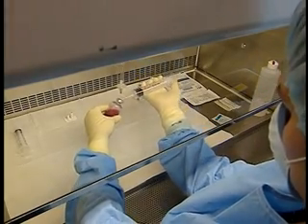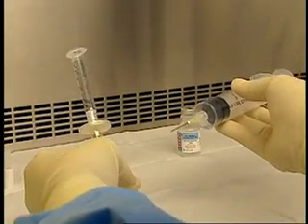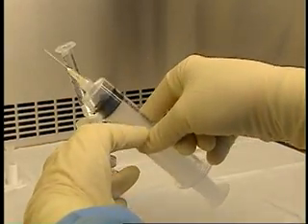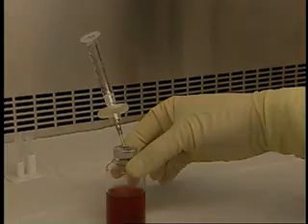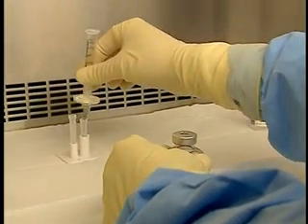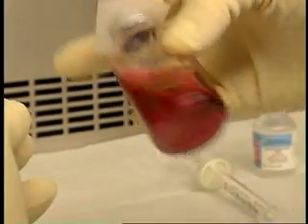Once the fluid is injected, withdraw the diluent syringe first as it is heavier, otherwise the vial might tip over. To do this, draw a little air into the syringe before removing it. It is very important to maintain pressure on the plunger the entire time while removing the syringe. Discard the diluent syringe without recapping it. Withdraw the vent and cap it. Now all you have to do is agitate the solution. For products that cannot be agitated, wipe the stopper with an alcohol swab and roll the vial between your fingers at a 45 degree angle. For other products, place an alcohol swab on the vial and agitate with a circular motion to prevent leaks through the stopper. Check that complete dissolution has been achieved before making any withdrawals — the solution should not contain any foam or undissolved particles.